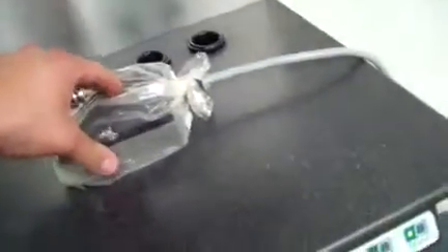It has the power receptacle on the side. The vacuum, as you can see, with the foot switch and the pressure are both working. They also work obviously with the button control there.